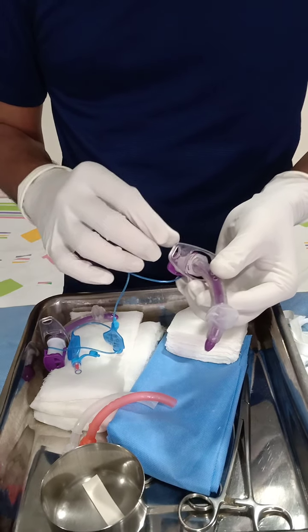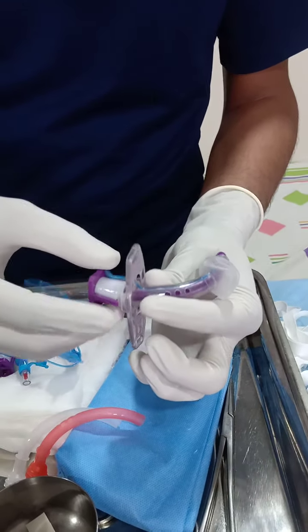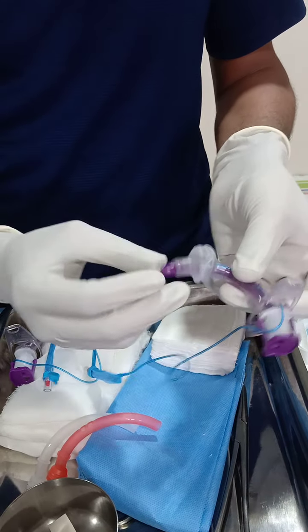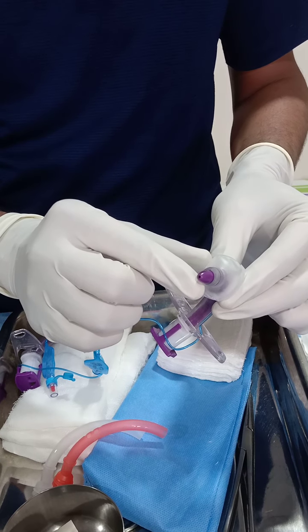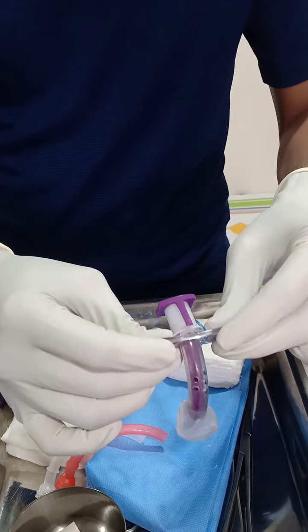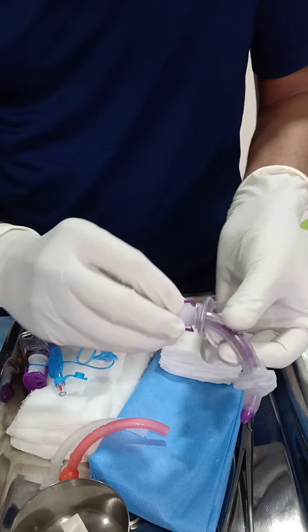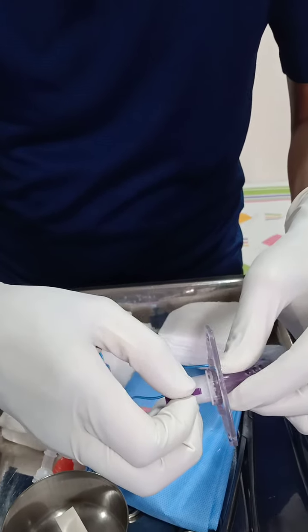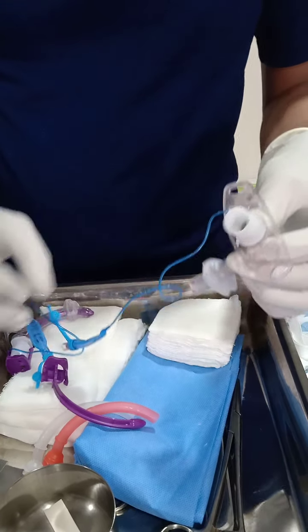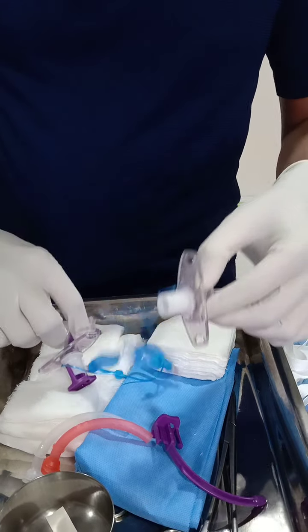You can see a purple tube which is inside the tracheostomy tube — this is an obturator. It keeps the lumen occluded, and the distal end is smooth and tapering, so when you introduce the tracheostomy tube it ensures smooth entry and avoids injury. It remains latched here, and after the tube has been introduced you pull it back and take it out; now the tube is ready for ventilation.